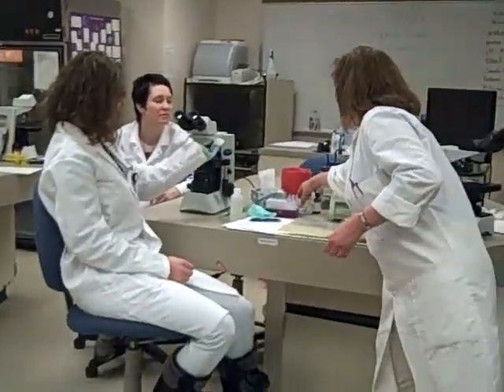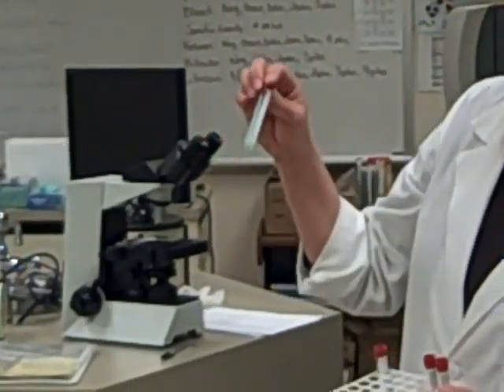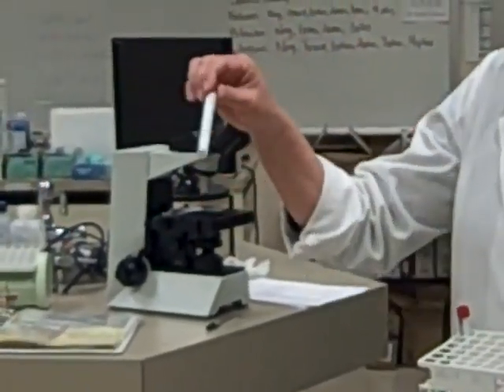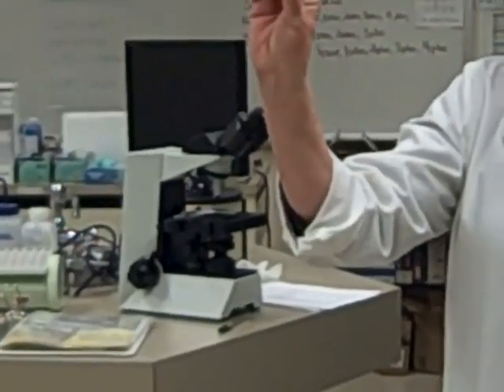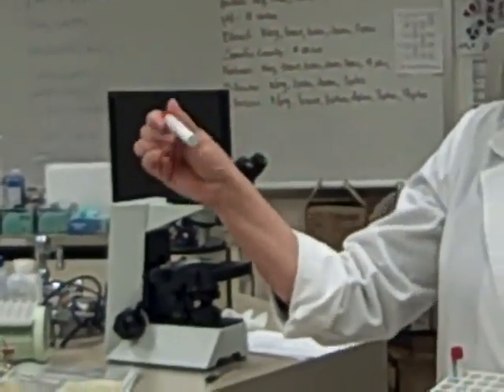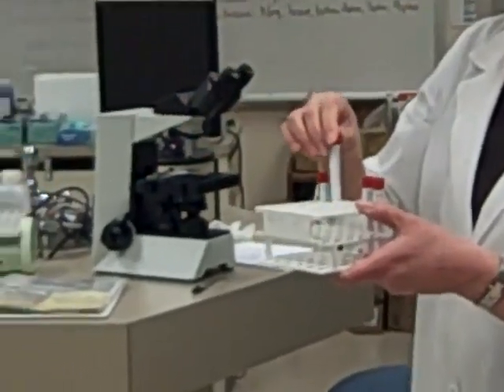Guys, what we're going to do today is cell counts using the hemocytometer, and we're going to look at body fluids. We've got two specimens at your table. One is kind of colorless and clear. It's hard to see through the plastic tubes, but down at the bottom you can see a cell button. The colorless and clear one is going to have probably a lot of white cells in it, and very little red cells.